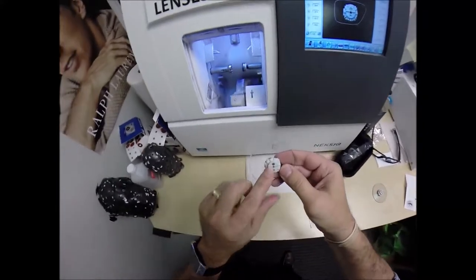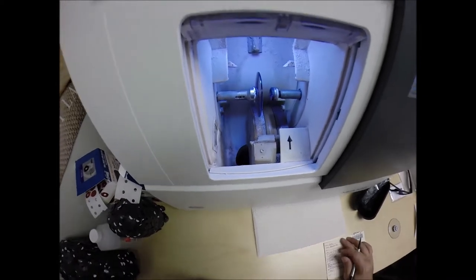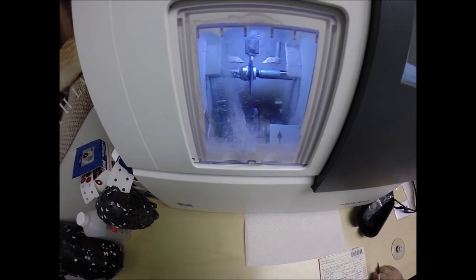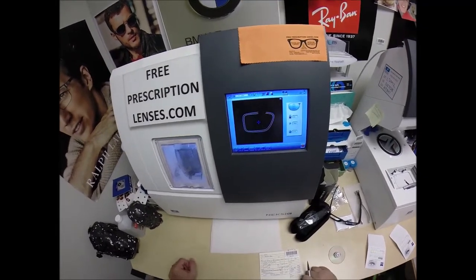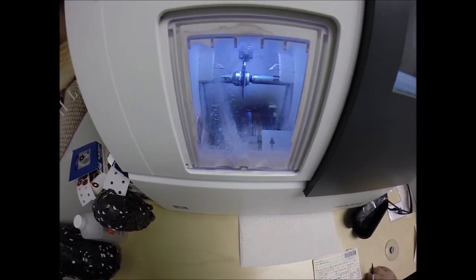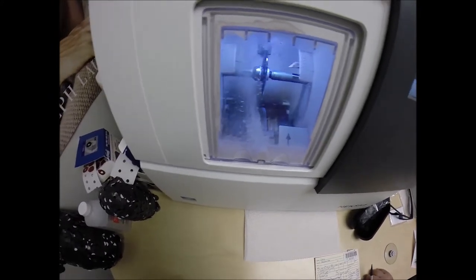The magnet is going to do its job a second time — it's going to attach itself to another magnet there in the chuck, or as I like to call it, the Charles, because I just don't know this machine well enough to call it chuck. Hit the green start button. The door closes — the dirty door, I really got to clean that thing. The lens is going to be traced by two white styluses, making sure it's large enough to fit into the frame. You can see as it's going around tracing the shape of the right lens.